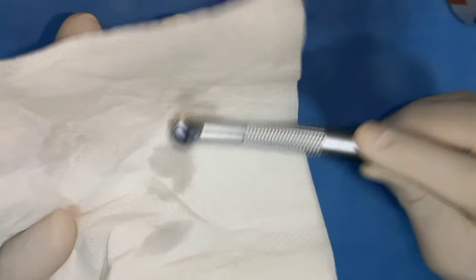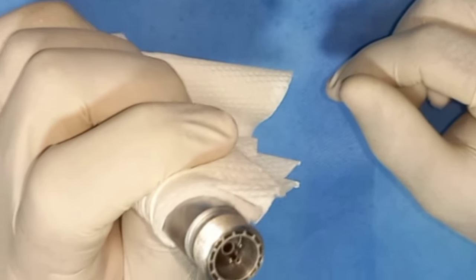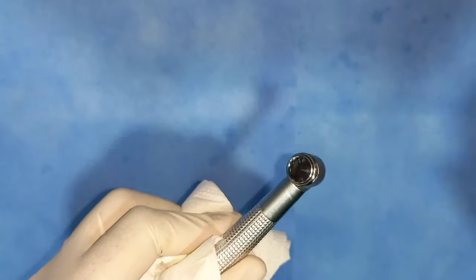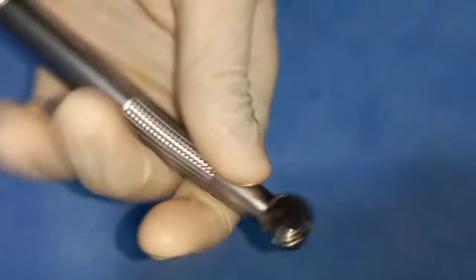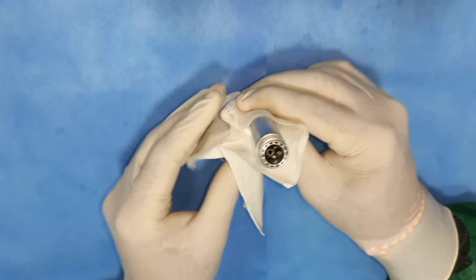For occasional or weekly maintenance, oil the water inlet of the air rotor as well to avoid rusting and keep the nozzle patent. The next step is oiling the air rotor head or bur end, and also the push-button switch — in the case of chuck type, oil that area too. Once you oil the head, press the chuck or push button two to three times, as debris accumulation can make the push button very tight. After oiling is complete, keep the air rotor standing upside down for a few minutes, then pack and seal it for autoclaving.